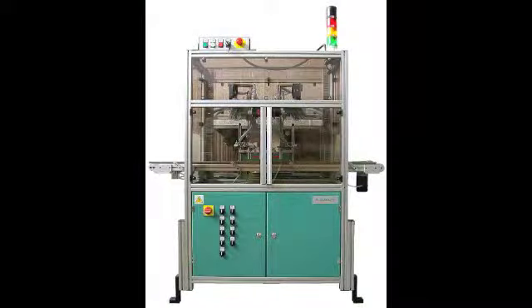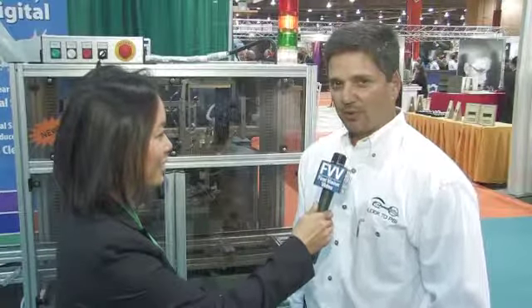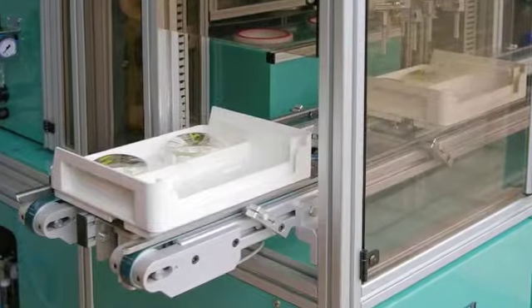I know that the handling system is very easy to operate and start. That's correct. The unit is delivered to the lab, as you see here, fully assembled. The only thing needed is your standard air hookups and electrical hookups. The machine's use is fairly simple — you place the lenses in the tray.